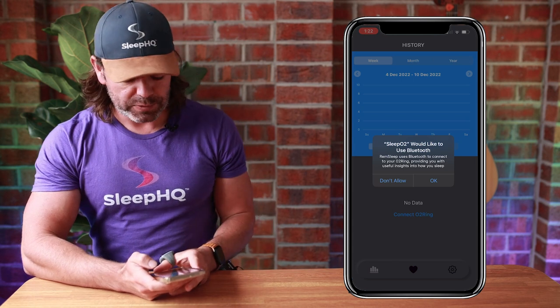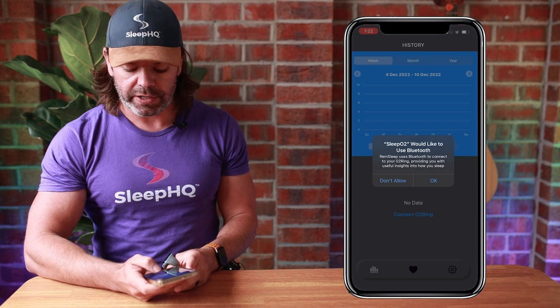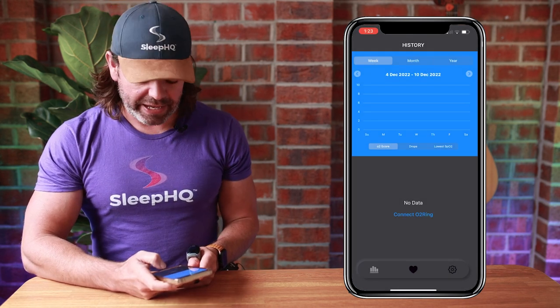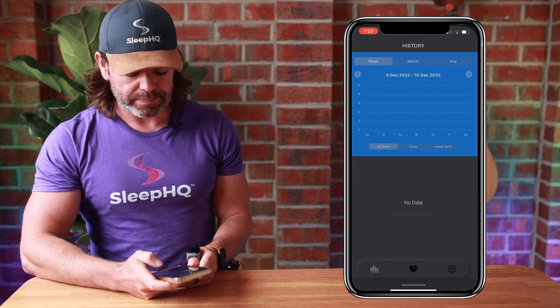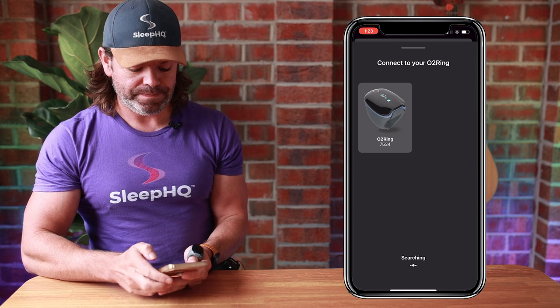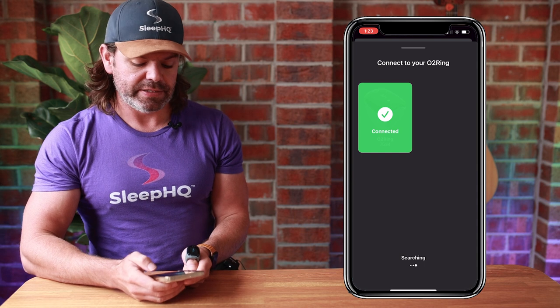The first time you open the app, you'll receive a notification: SleepO2 would like to use Bluetooth — click OK. Now just click Connect O2 Ring. Make sure your ring is on your finger, then click your ring. Connected.